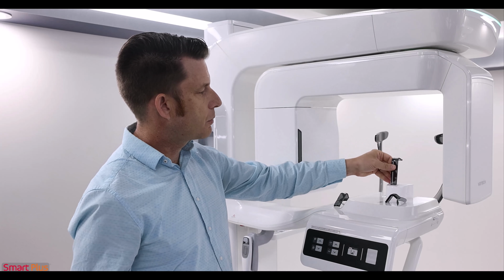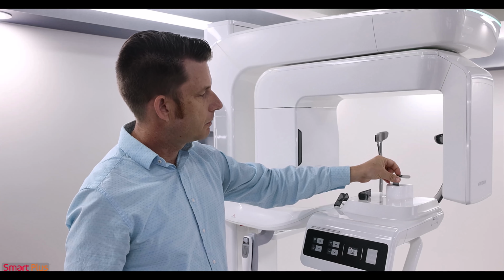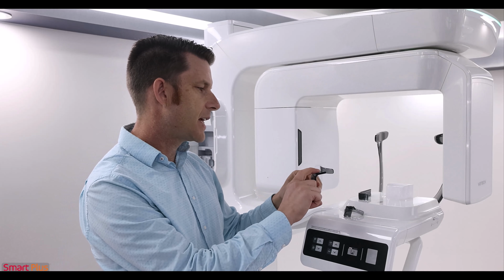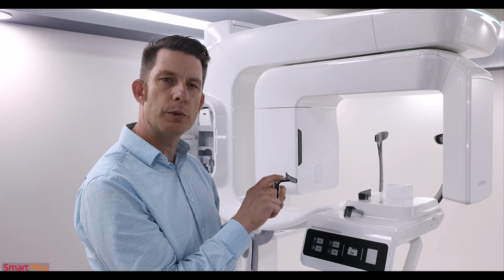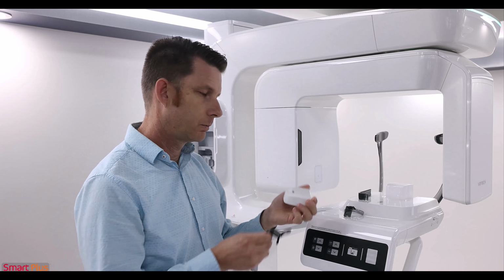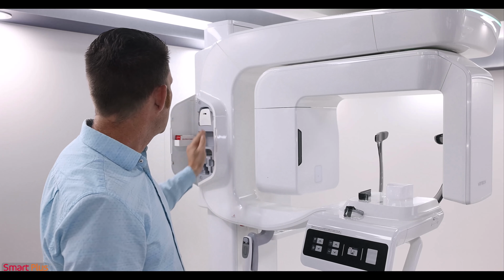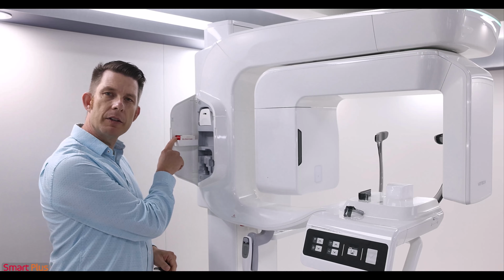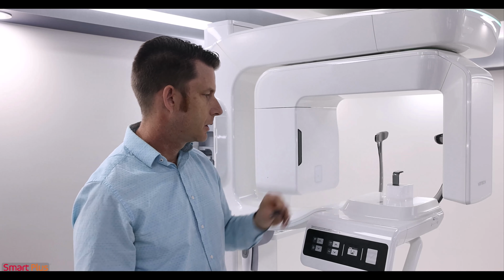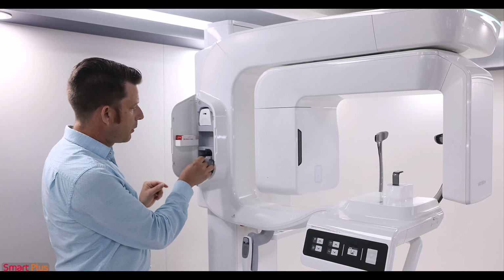The bite stick will be used with the tall chin rest, as will your edentulous cup. It just sits down in the device there. Your taller TMJ sinus appliance will be used with the shorter chin rest, which is located on the side compartment. Also within the side compartment are your bite block covers. Go ahead and replace our bite stick, and we can put our appliances back in the side compartment.